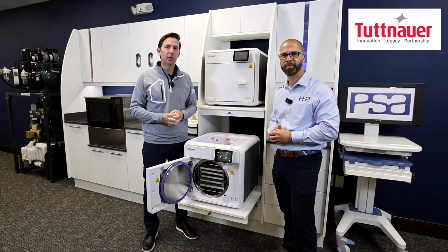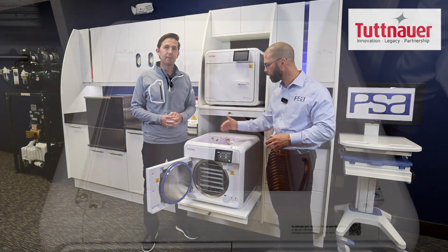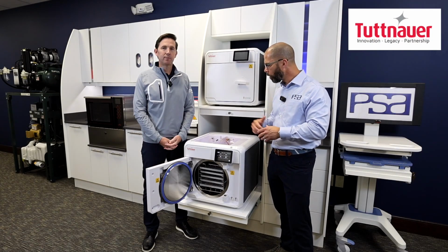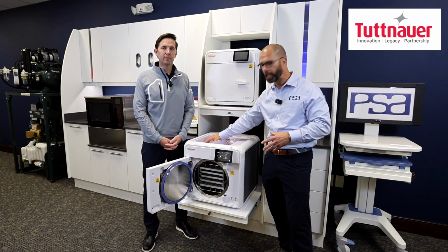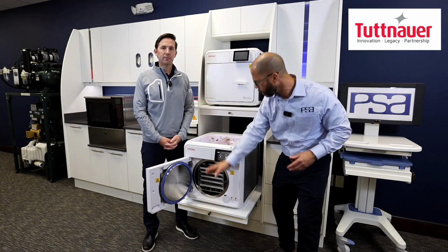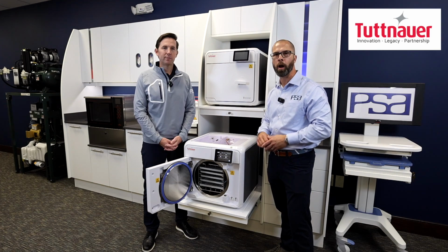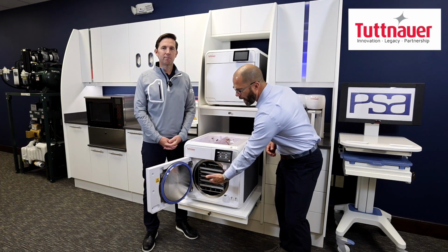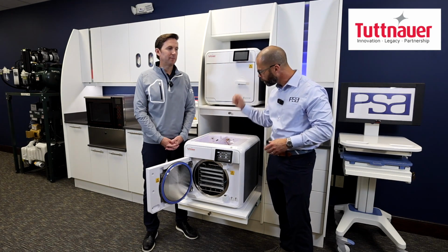One of the enhancements Tuttnauer has engineered into this T-Edge: since we have the top open and we're looking into the top of this, you notice 2 separate water reservoirs. This is a unique design feature to the T-Edge. What that enables this unit to do is have one chamber of water that stays clean and gets condensed to steam. Once that becomes steam and goes back to water, it gets put up into a wastewater reservoir, never to get entered back into that chamber. And the benefit of that is that you don't pick up any debris or any dirt from that sterilization cycle and recycle that into your water. You have a clean water reservoir and a dirty water reservoir.